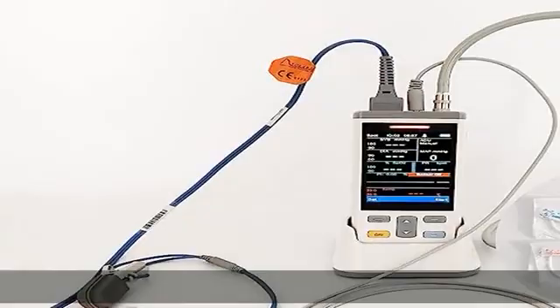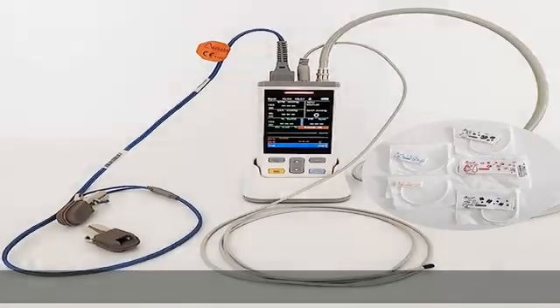In monitoring mode, can continuously record 48 hours of measurement data.